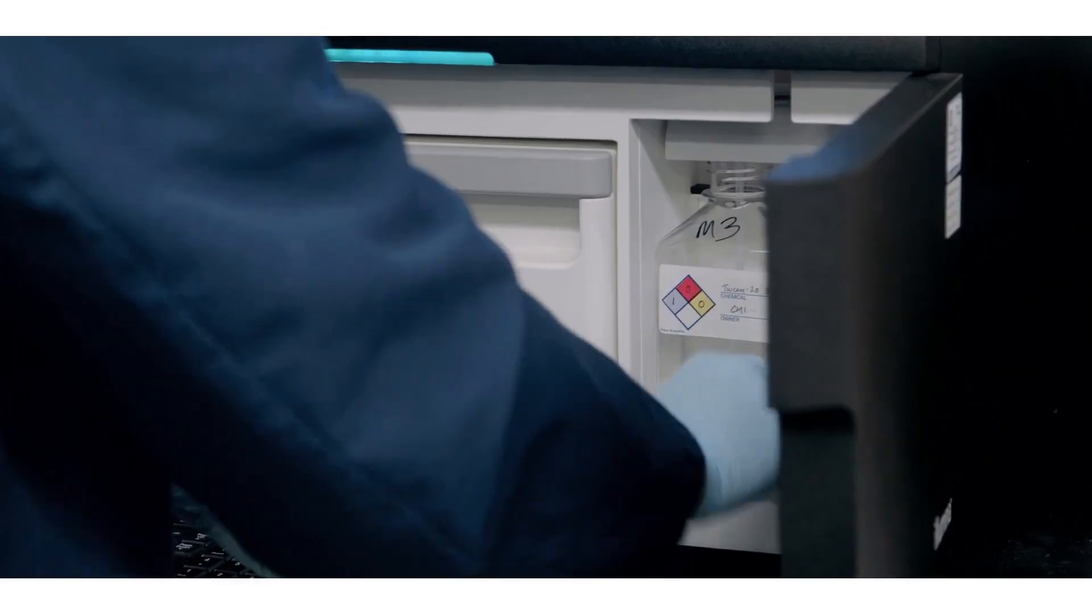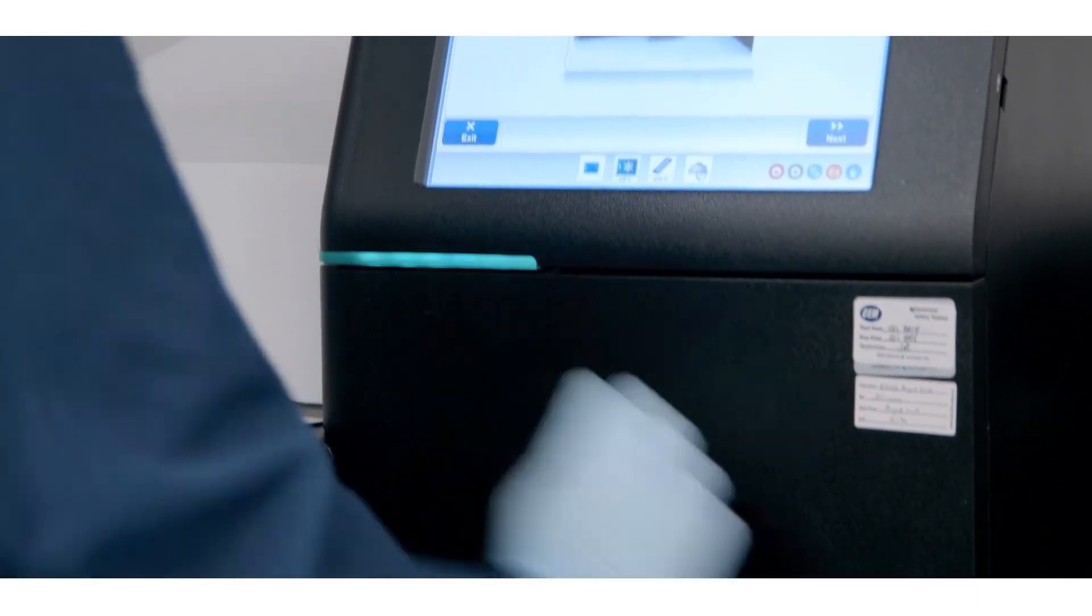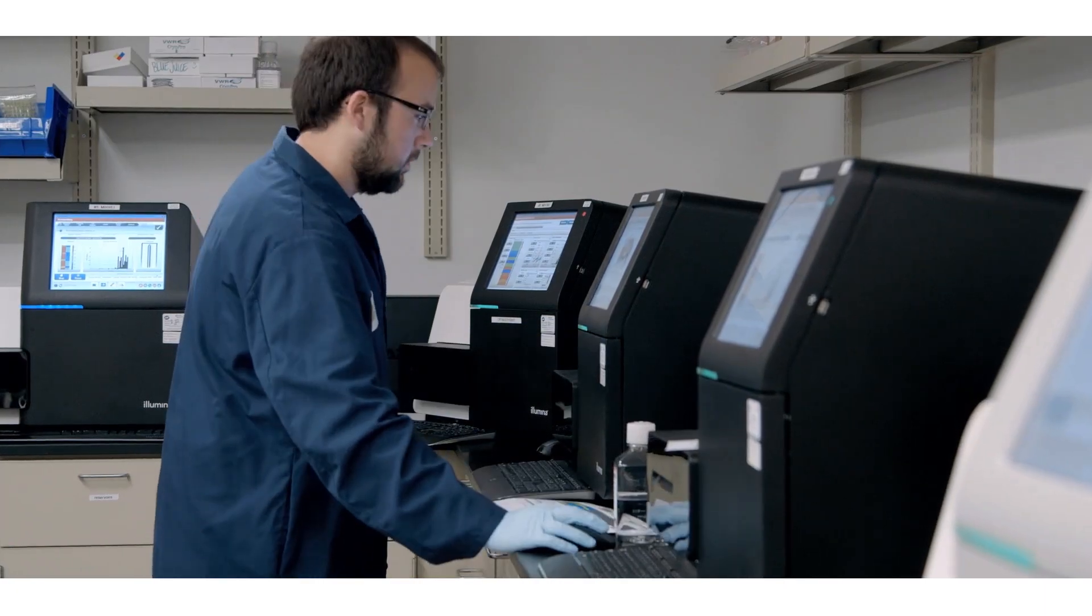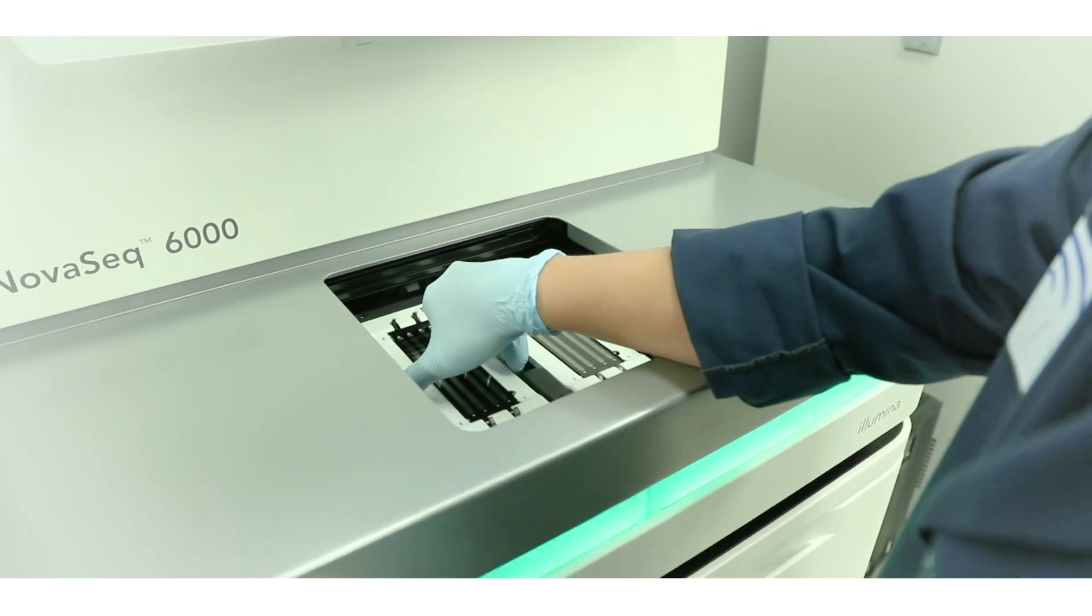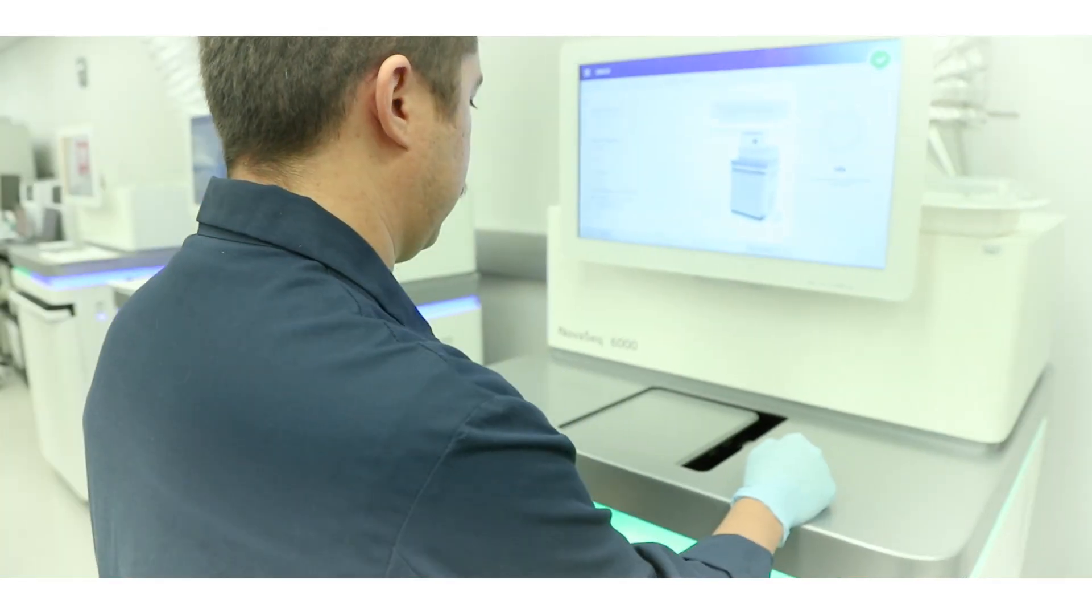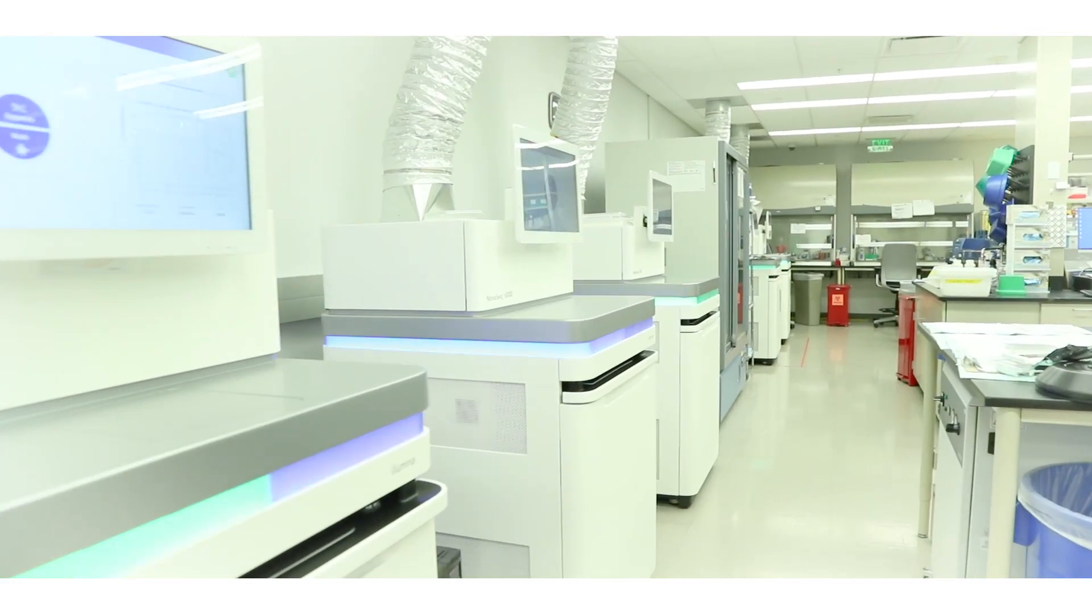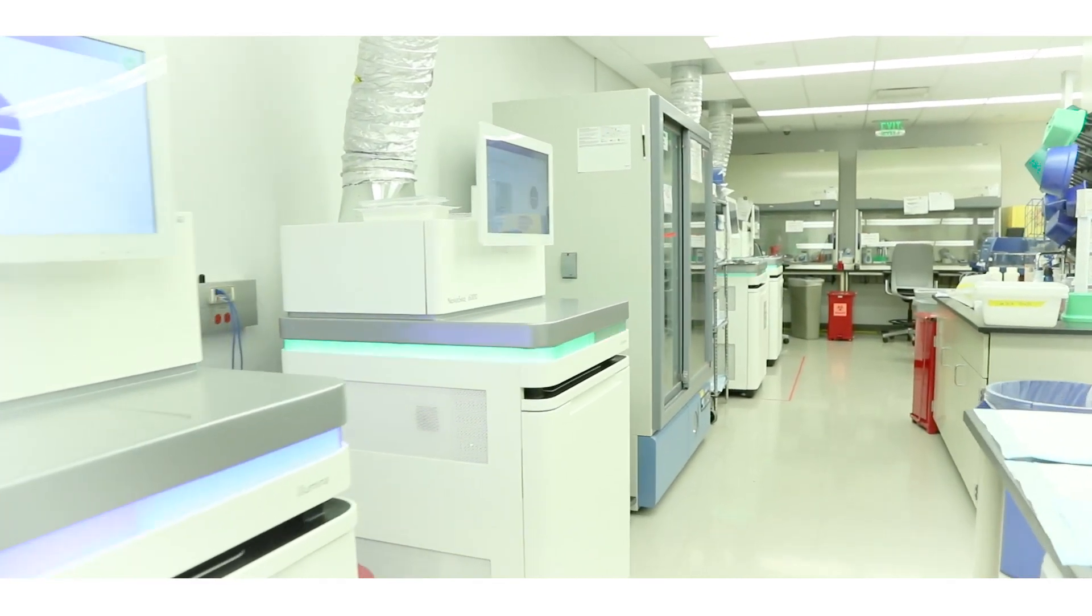Once the robot part is done, then we can load it on the sequencer. So the DNA panel right now will run on a NexSeq. Sometimes we run it on a NovaSeq. The RNA runs on a NovaSeq. So we've got five NovaSeqs that are in clinical production today.